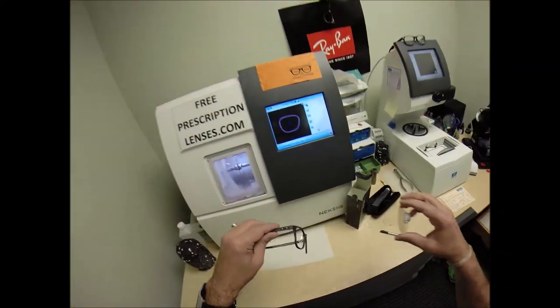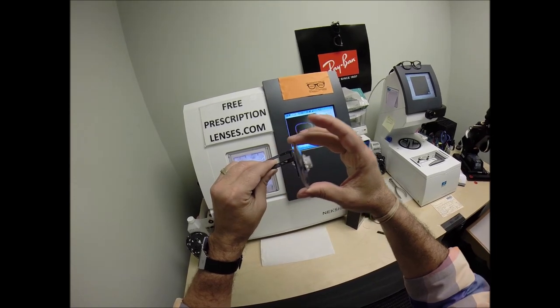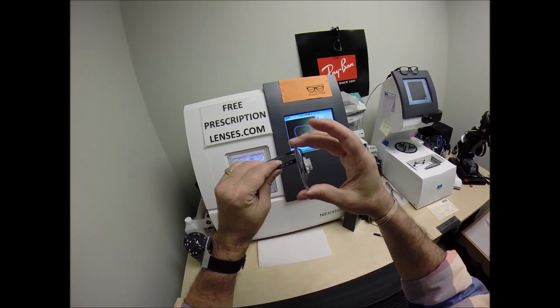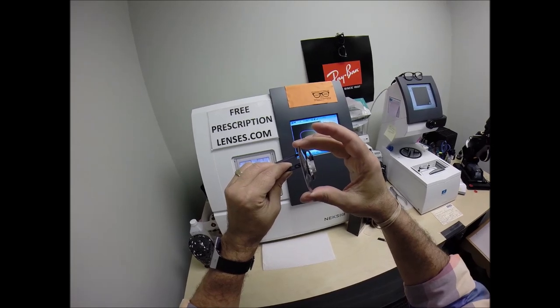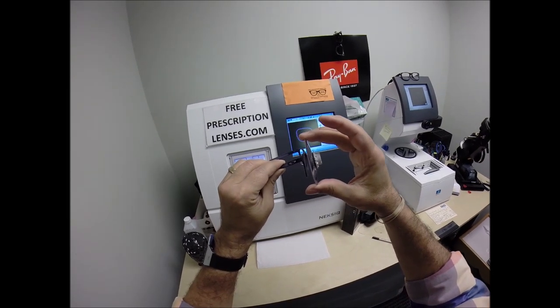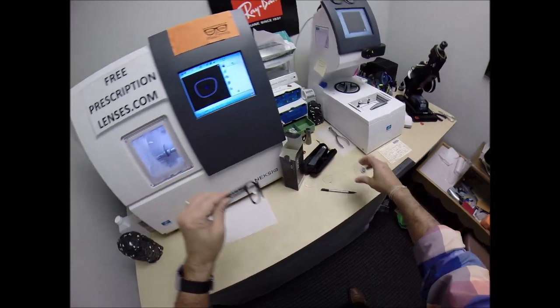But if these were strong prescriptions, I can move the bevel forwards or backwards. I know that's the opposite of the direction, but if I move the bevel forwards, that would force the lens back into the frame. Or if I move the bevel backwards, it would force it forwards, which I would never do. But I do have that capability.